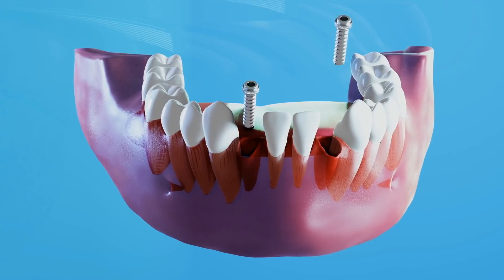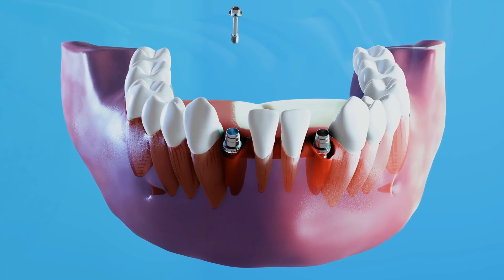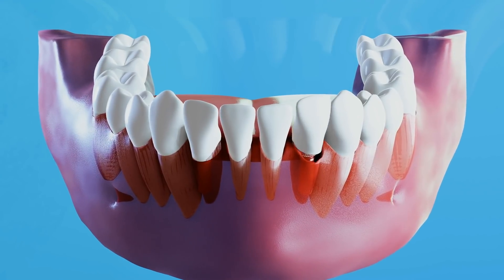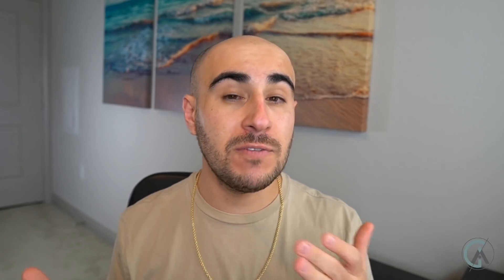The implant is the part that goes into the bone. What goes on top of it can either be a crown, if it's one tooth, or a bridge, if it's two or more teeth. There are a lot of different ways your dentist can use implants to restore teeth. The concept is that it puts something in the bone that can support an individual tooth or a series of teeth. The beauty of dental implants is that they have really great long-term stability — they could stay in the bone for a long time and have a pretty low failure rate.